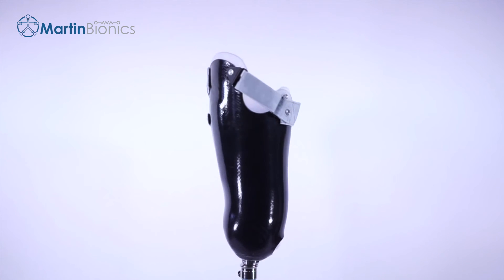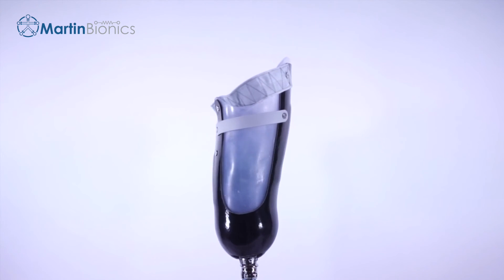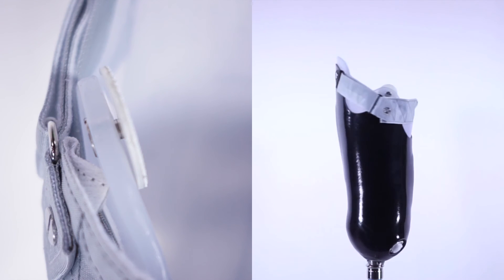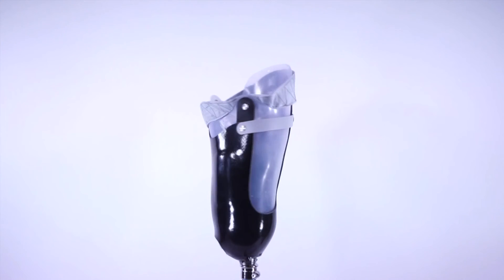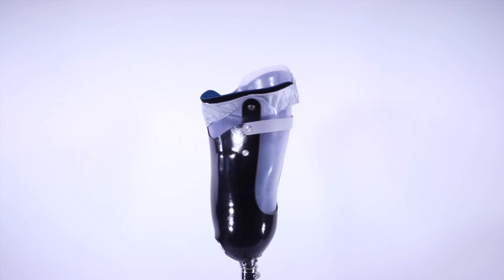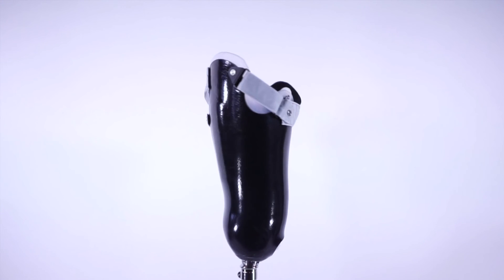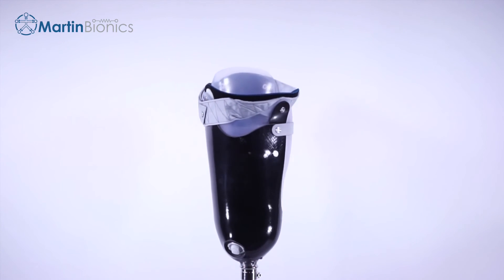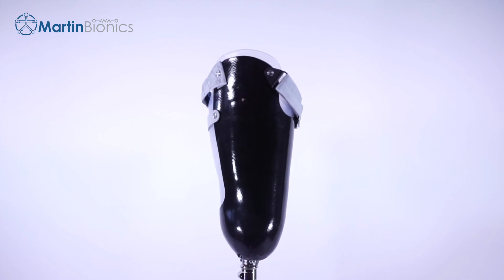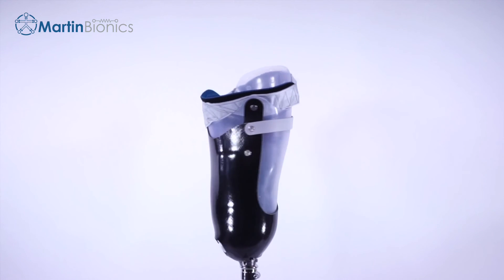Mount the Swing Webbing to the Strut Sert through the existing flexible inner socket using a truss nut or rivet. On the Scarpa's area of the existing flexible inner socket, mount the Velcro-back swivel using a truss nut or rivet as well. Be sure the swivel can still swivel, as this will be used to attach to the brim pad. Finally, attach the brim pad to the Swing Webbing using the Velcro dots provided. It's typically easier to place the brim pad beginning with the anterior swivel first and laying it onto the Swing Webbing toward the back. The brim pad height can be adjusted with respect to the Swing Webbing and can be trimmed as needed. Since it is mounted with Velcro, it can easily be removed for washing as well.